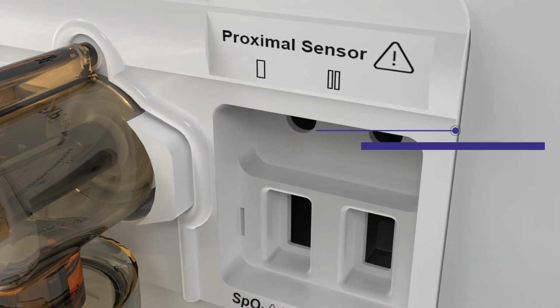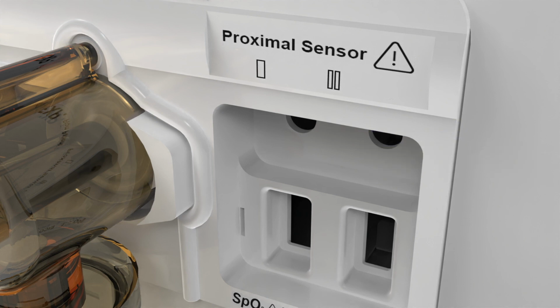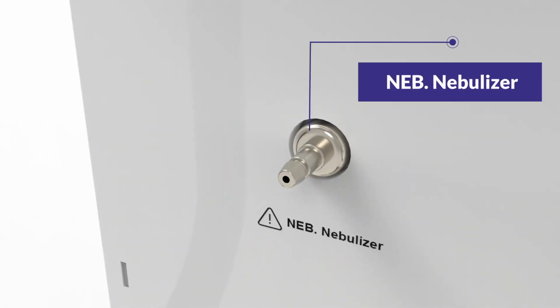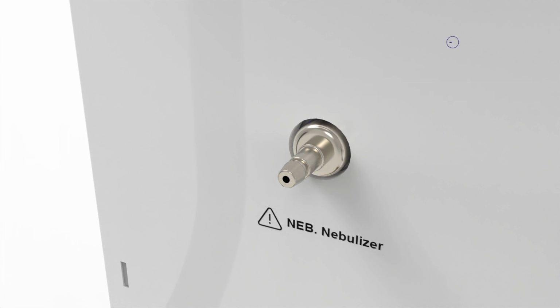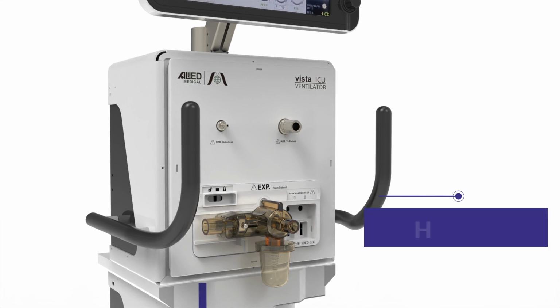To the right of the expiratory port is the upgradable window. For neonatal use cases, proximal sensors must be used. It consists of 2 ports, that is SpO2 and EtCO2. The ventilator has an inbuilt nebulizer compatible for adult and pediatric patients only. The 2 handles on either side of the ventilator help in easy maneuvering.